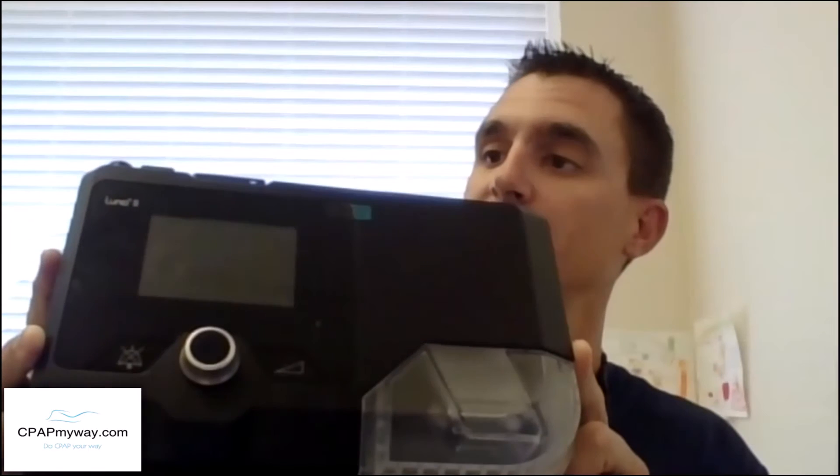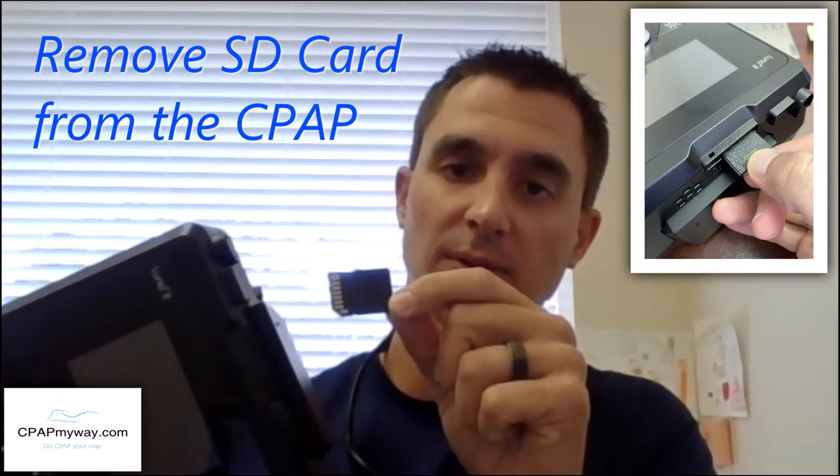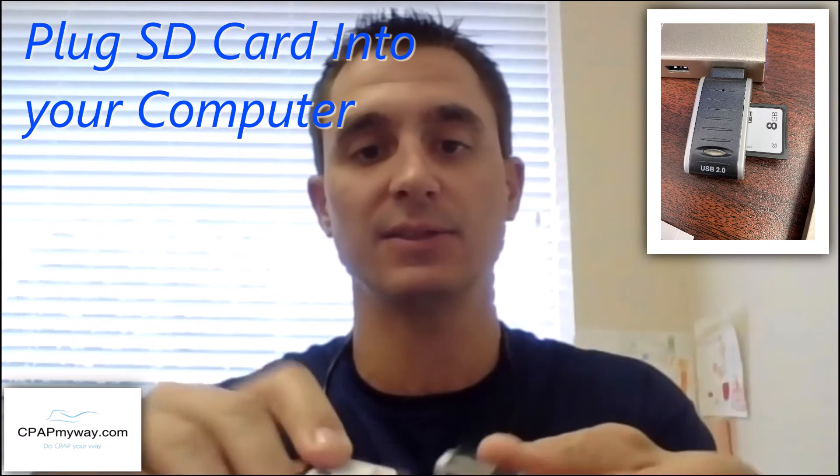So this is the Luna 2 CPAP machine. If you're trying to get a compliance report, the first thing you'll want to do is take out your SD card — I'm going to pull it out here. Then you're going to insert that SD card into your computer. This computer must be connected to the Internet so that you can access the website. It plugs right in.